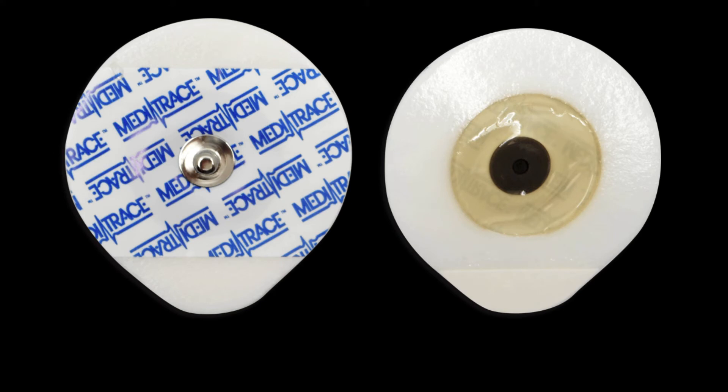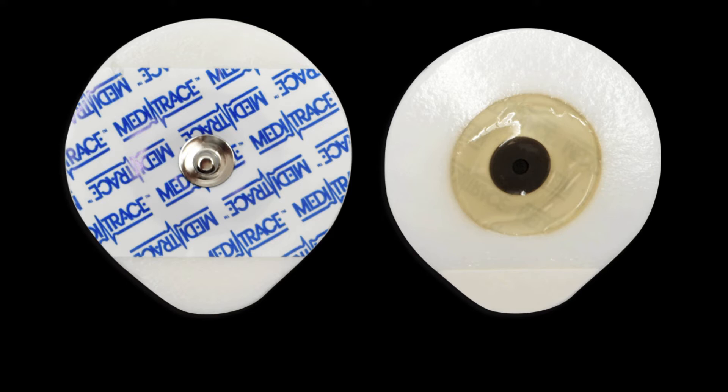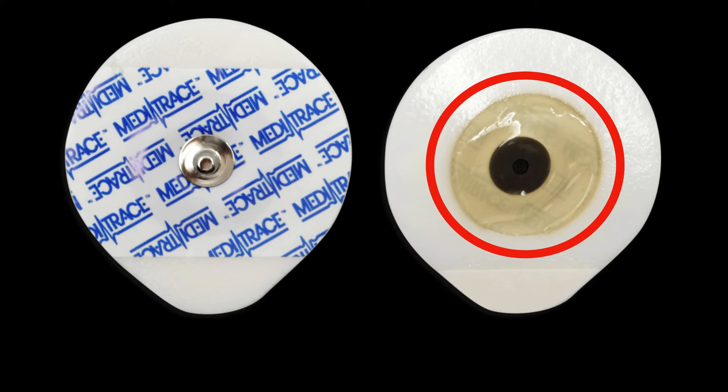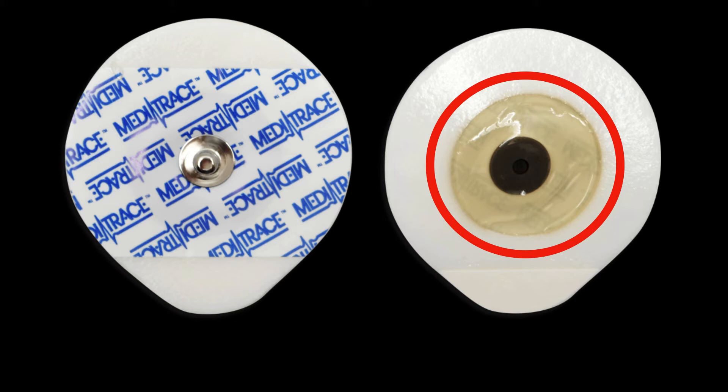The equipment we use to gather data starts with electrodes — the actual pads that are put on the skin. It's an adhesive pad that contains conductive gel. It's important to note that the conductive gel is in the center and is separate from the adhesive. Dried-out ECG leads can give you poor signal because the conductive gel has dried out.